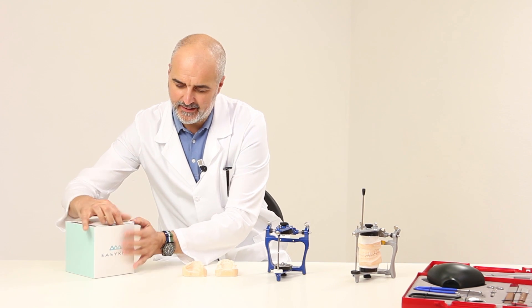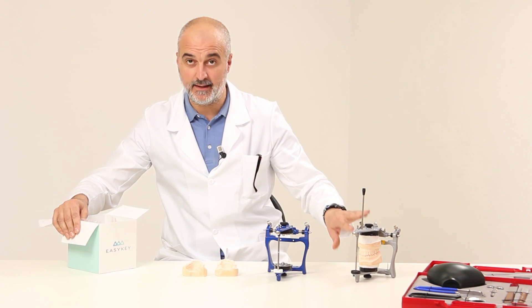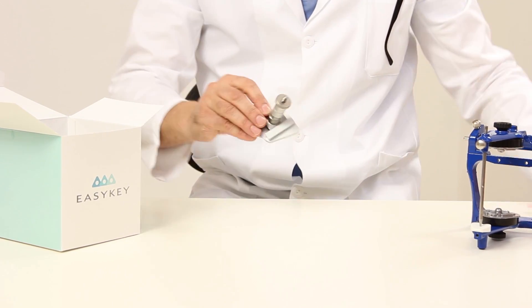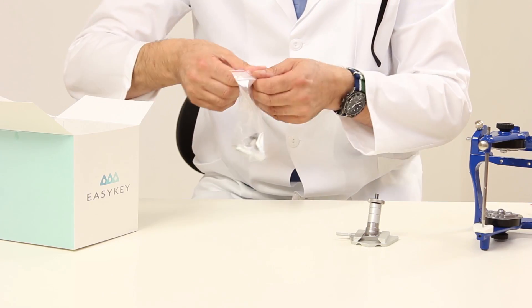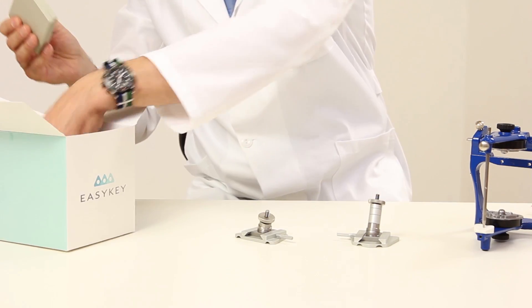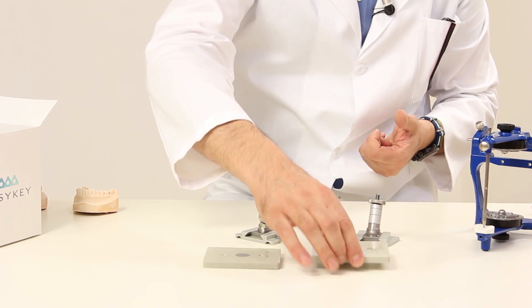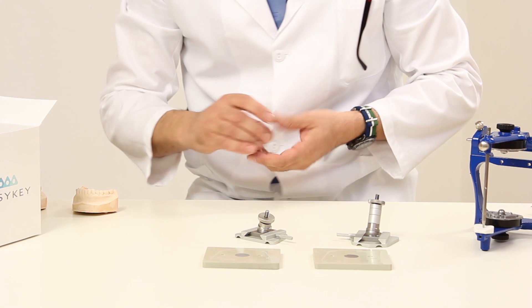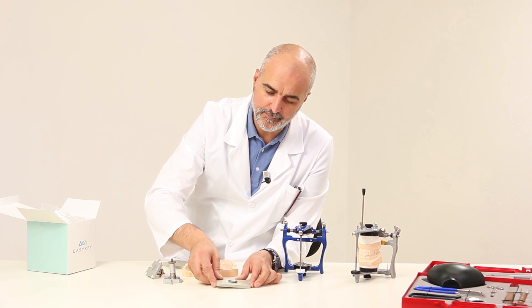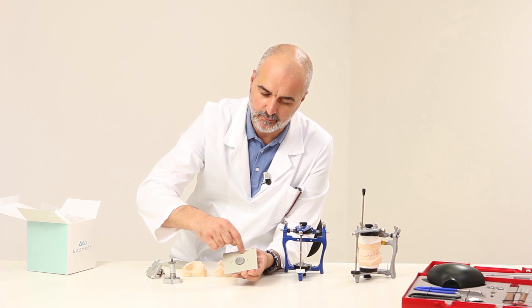As an optional possibility, the entire range of Azadental articulators is compatible with the system called EasyKey that allows working without plaster. In the box, we can find the upper part, the lower part, and the two bases on which models are developed. The bases are medical material. In the center of the base, there is a magnet on which a metal plate is placed. The impression is developed on this base and, working within this space, less plaster is wasted.